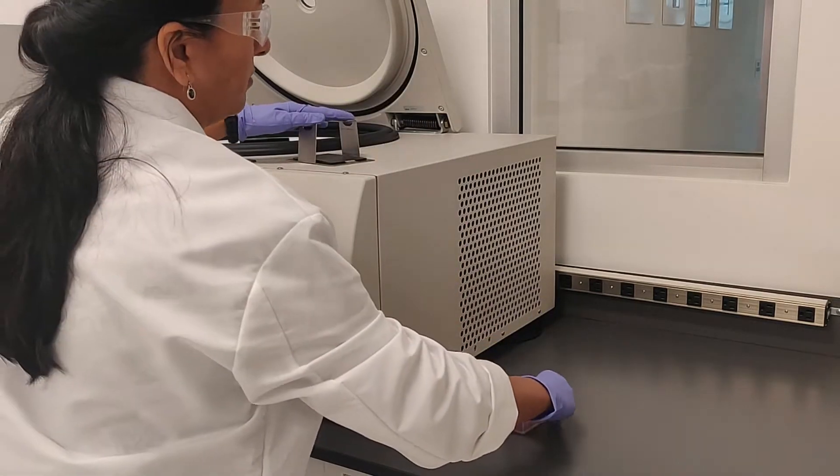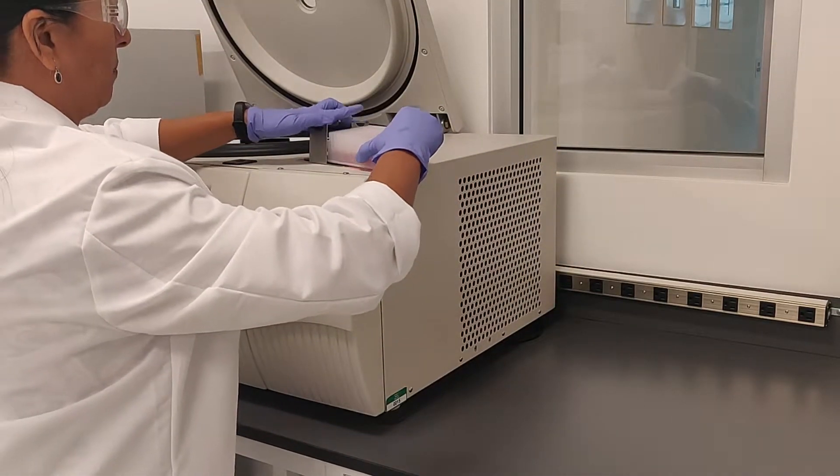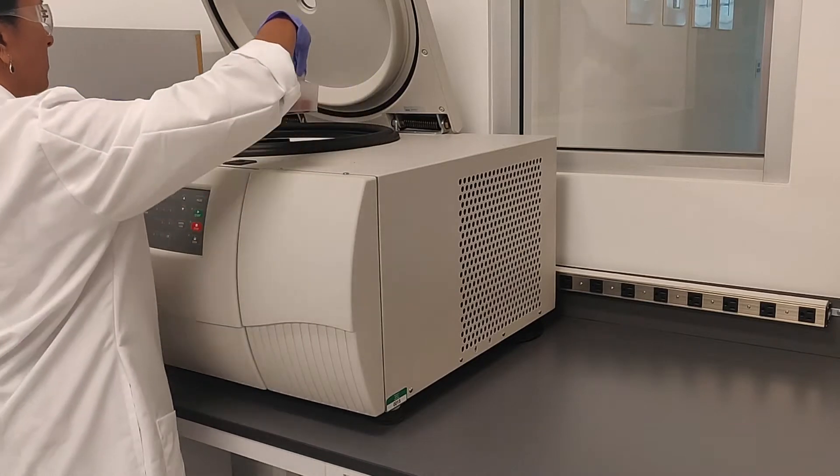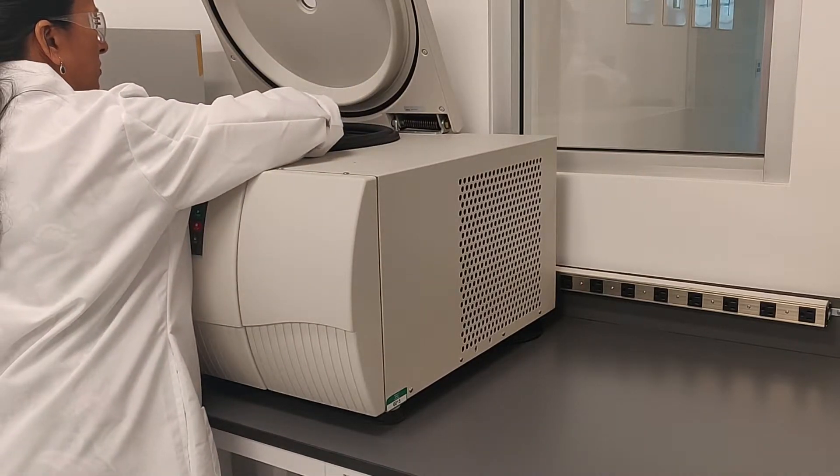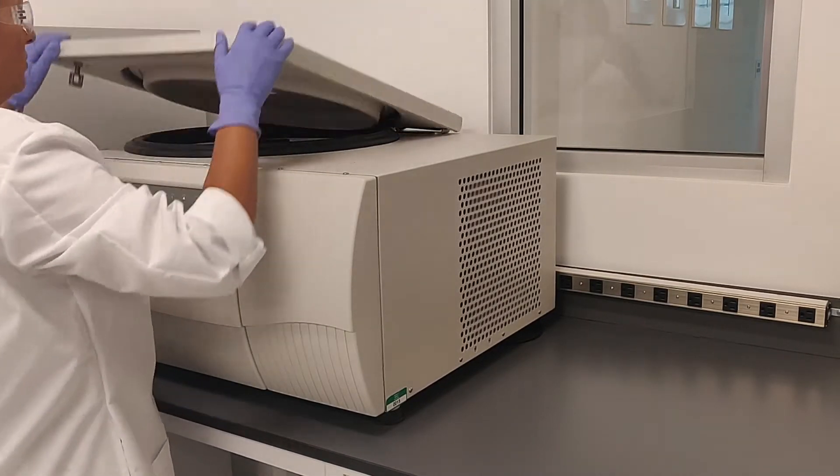With one day of training, you've reduced workload, cut systemic errors, and work faster and smarter. That's the promise of micro-sampling automation. Deliver.